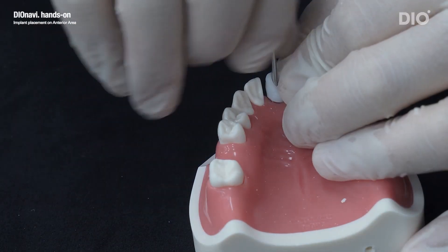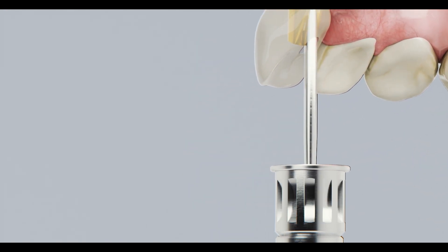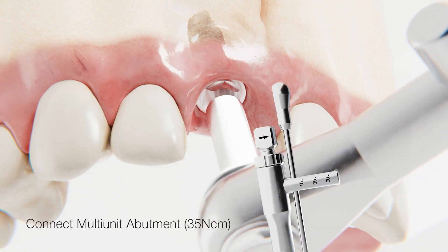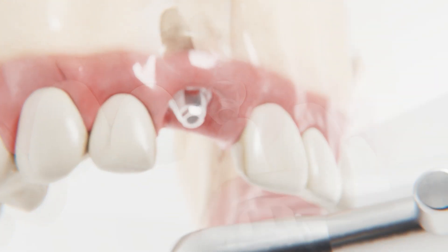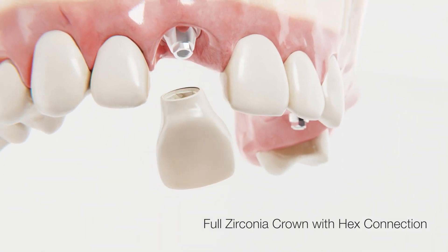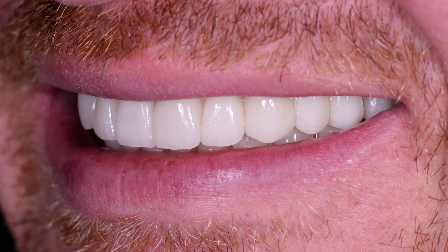Let's start by talking about anterior tooth implants. These are dental implants that replace missing or damaged front teeth, also known as incisors or canines. Anterior tooth implants are placed directly into the jawbone and can be used to replace a single missing tooth or multiple missing teeth. The implant is topped with a crown that is custom-made to match the color and shape of your existing teeth, resulting in a natural-looking smile.